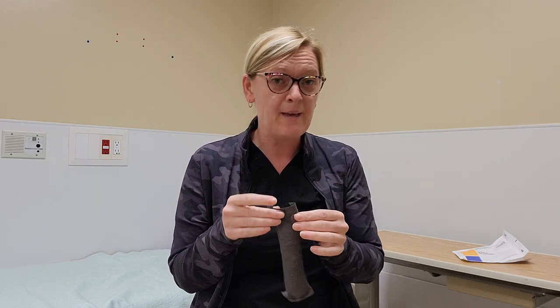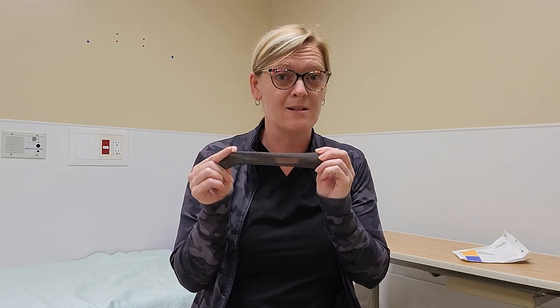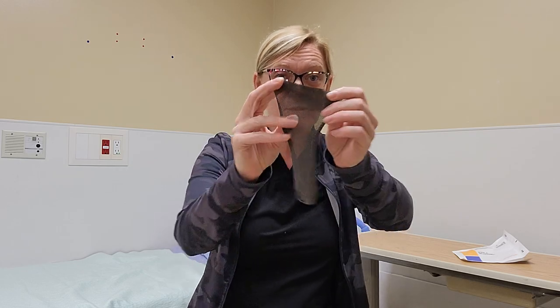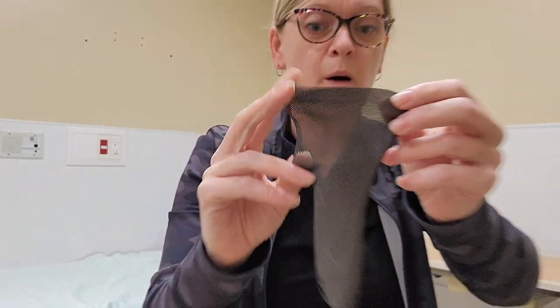When you have a really smelly wound or you have something that is critically colonized and is moving towards infection, I often always reach for and use this ActiCoat Flex. It's fenestrated, so there are small tiny holes — you can see me through it — and that allows for drainage to come through. It can be packed into anything quite tightly, and you can cut it into strips.